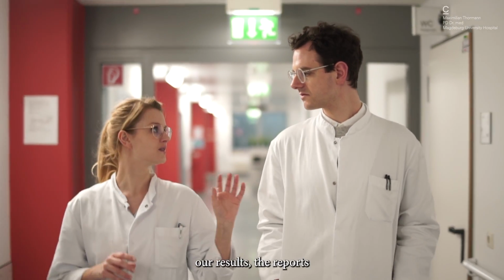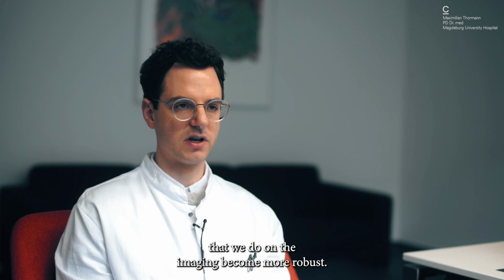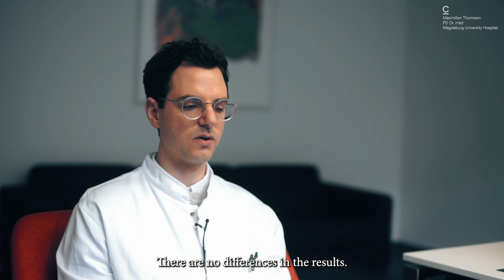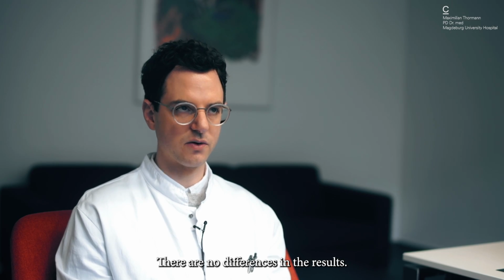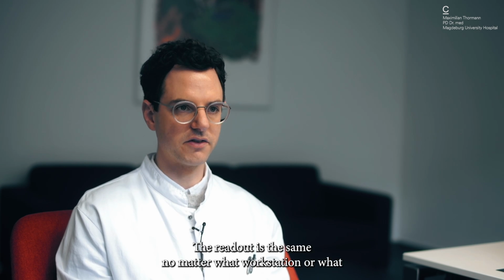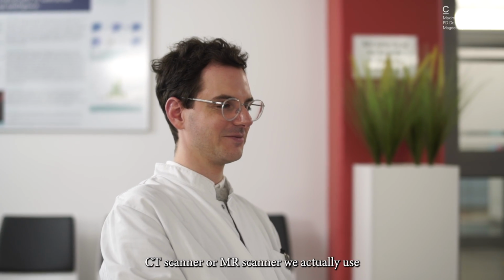Our results, or the reports that we do on the imaging, become more robust. We can reproduce the results easily. There are no differences in the results. The readout is the same no matter what workstation or what CT scanner or MR scanner we actually use.